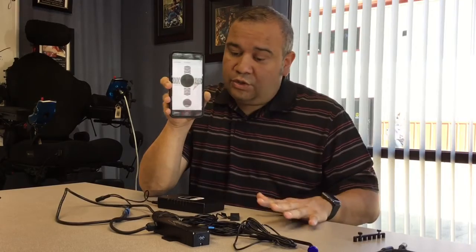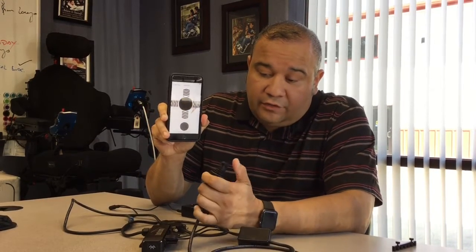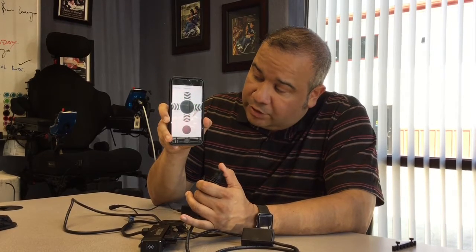The last thing I want to show you is that we were also able to do a joystick. I'm going to program the joystick real quick. So now we've plugged in an iDrive joystick and I've got the diagnostic view. You can see here — again, no chair is plugged in — but we're able to show the full function of the joystick.